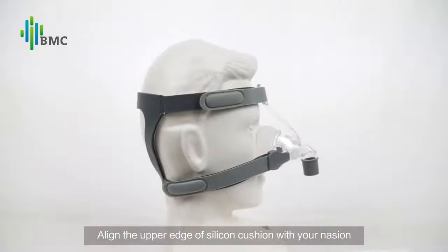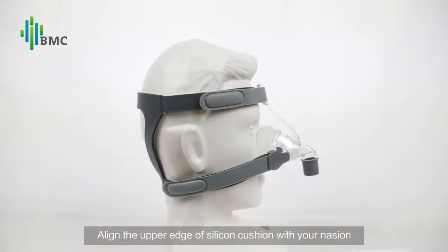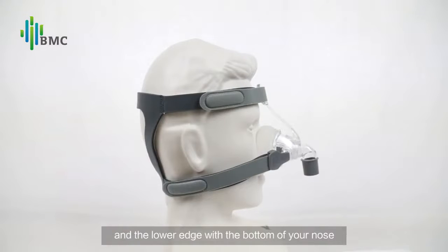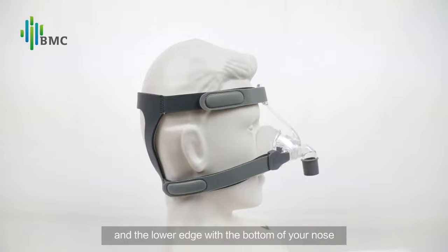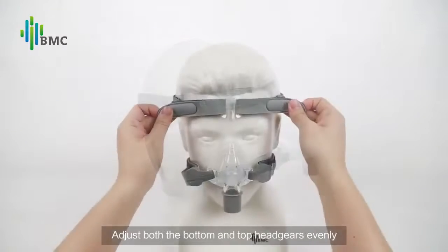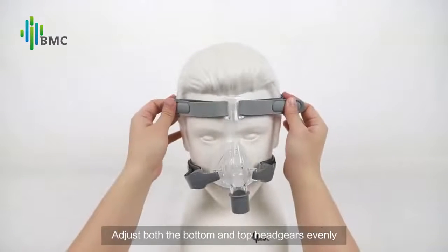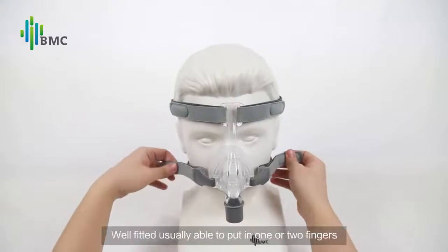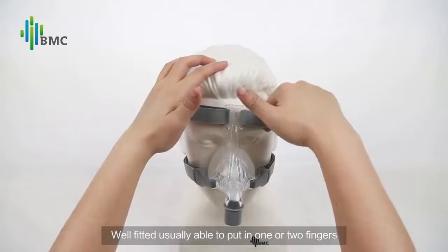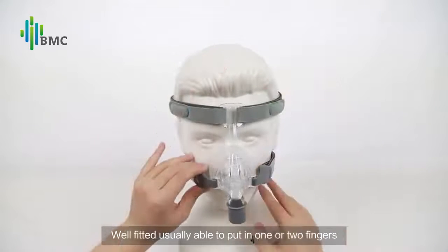Align the upper edge of the silicone cushion with your nasion, and the lower edge with the bottom of your nose. Adjust both the bottom and top headgears evenly. When well fitted, you should usually be able to put in one or two fingers.